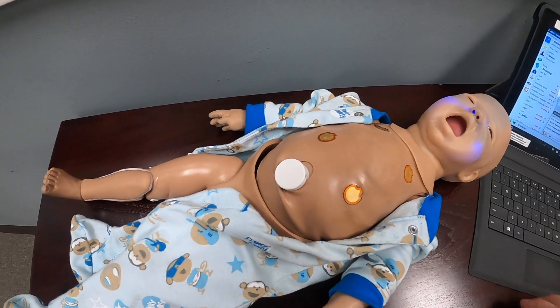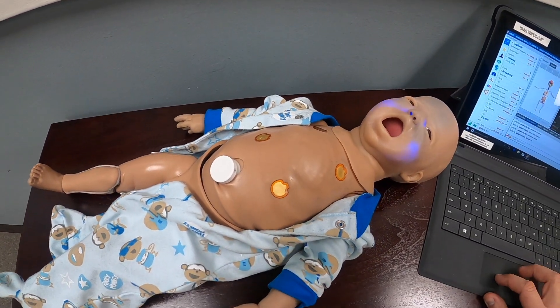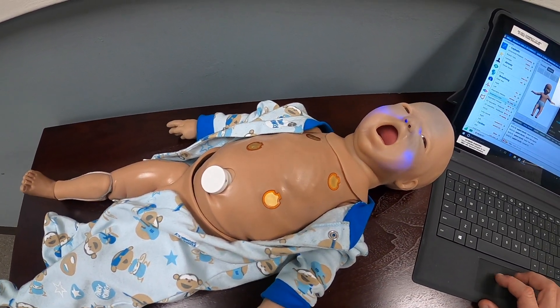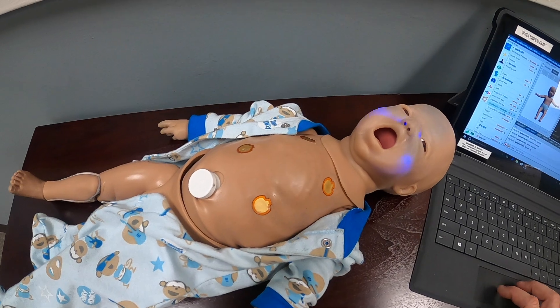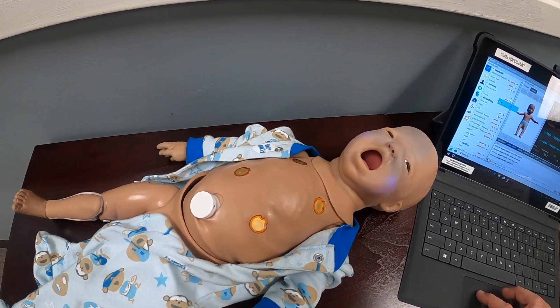IVs can be placed in bilateral arms. Going down to the legs, it does have actual spots for pediatric IOs. When students are learning the pediatric assessment triangle, you can also have the mannequin cry.